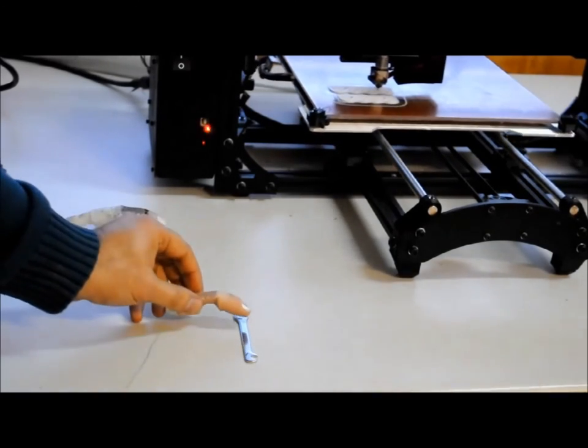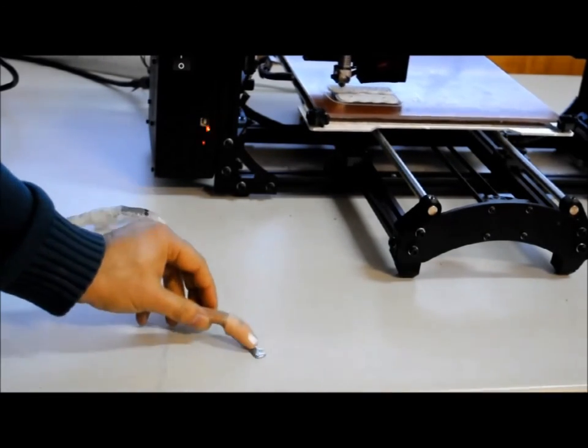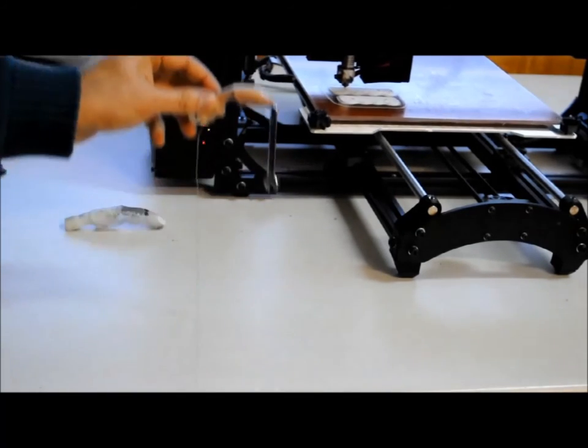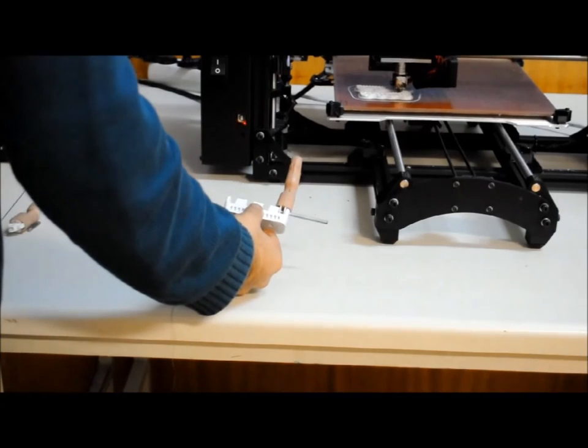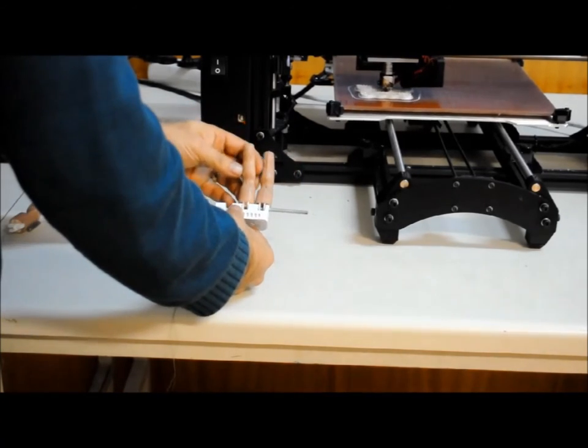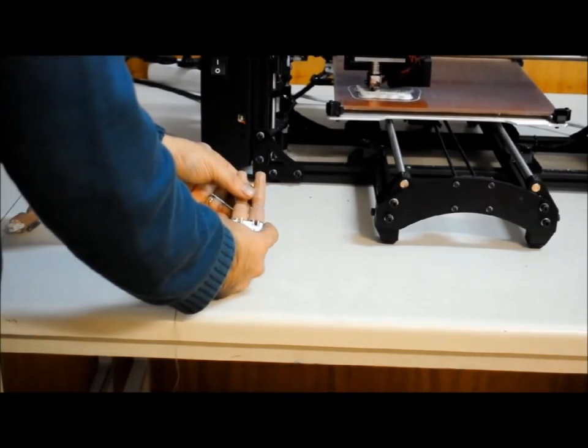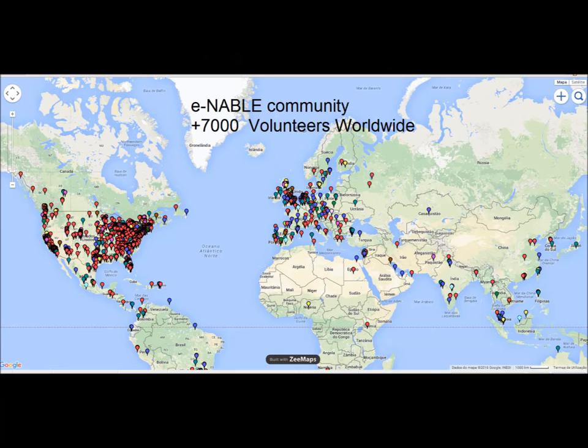Patients will be able to easily repair and change parts at home. In case of a failure or arrival of an update, each finger can be easily replaced independently. The current prototype costs around $100. On higher production volumes, this will be reduced to $50.